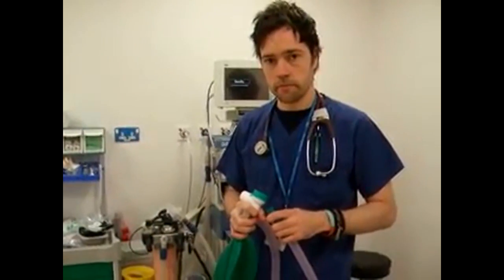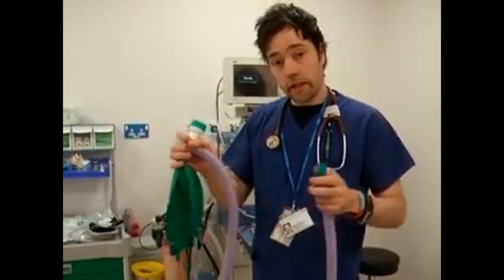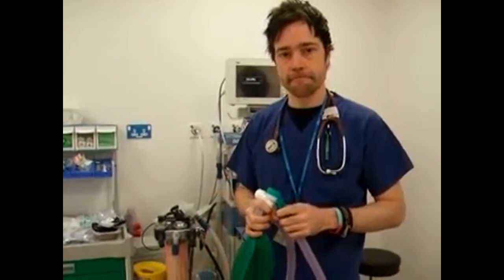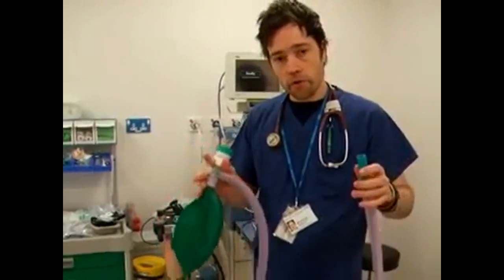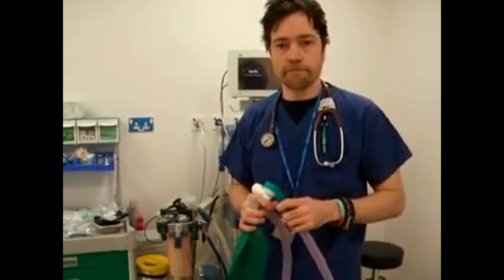Can you tell me what would happen if the length of the outer tubing was increased? Well, theoretically this can be as long as you need it to be, but as you increase the length, the resistance to expiration increases. And what is the usual volume of the outer tube? It is usually approximately equal to 1 tidal volume, or about 500 mils.